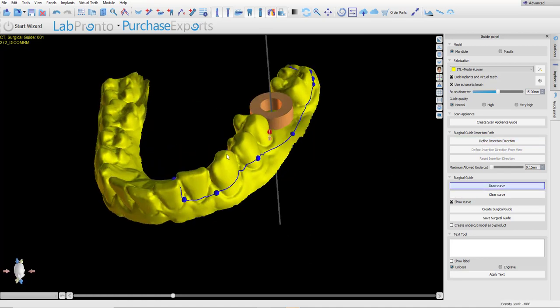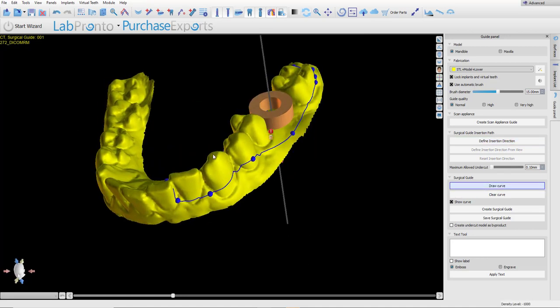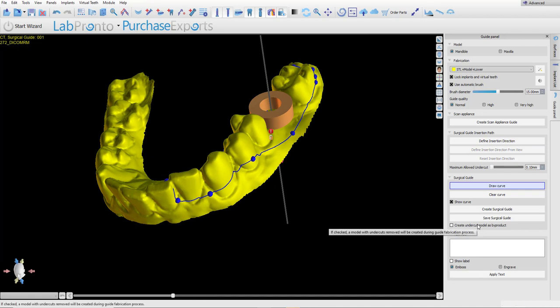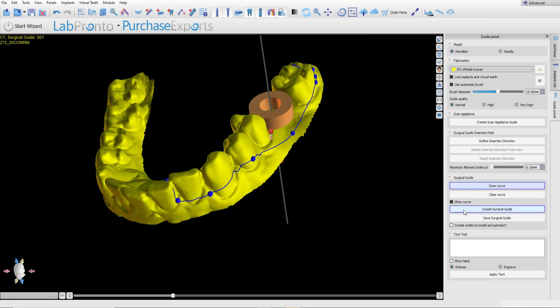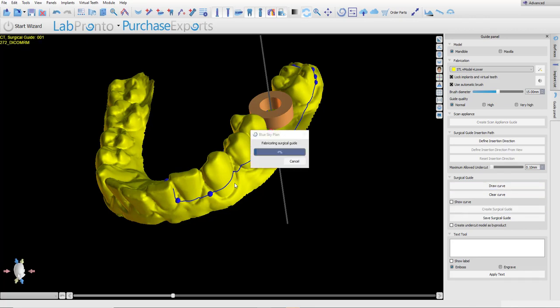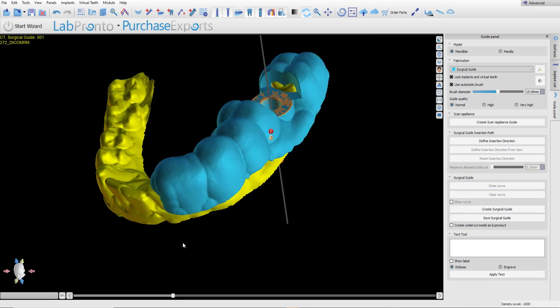Go ahead and draw your curve. And if you would like the software to create an undercut model as a byproduct, check the checkbox. First, let's create the surgical guide without checking the checkbox, and click Create surgical guide. And we could see that the software has created the surgical guide on the original model and has removed the undercuts at the customized path of insertion.